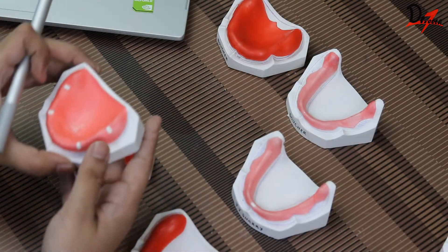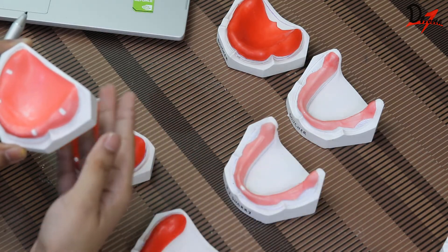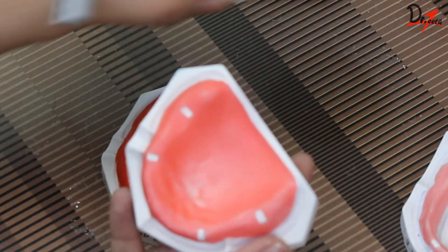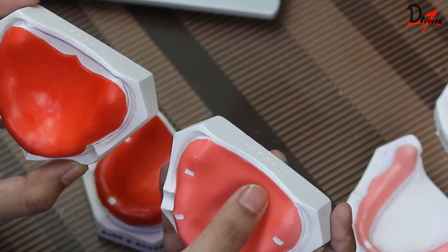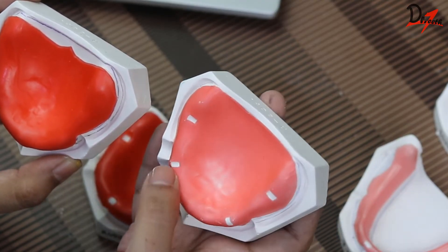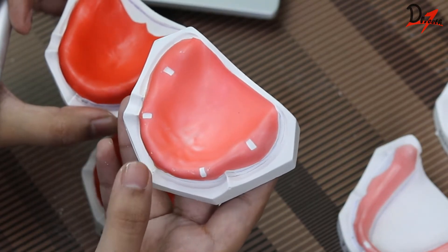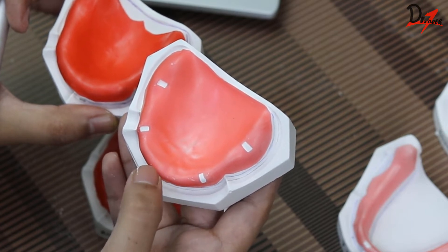Next is the design given by Sherry. Looking at the maxillary one first — if you compare it to the Boucher design, you can see that here even the posterior palatal seal area is covered. We also have 4 tissue stops: 2 in the cuspid region and 2 in the molar region. Sherry also recommended that while making the impression, we have to make a vent hole in the incisive papilla region.